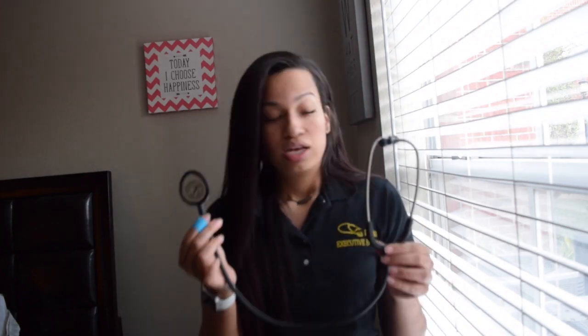Something else I like — this is an entry-level stethoscope, so it's not as advanced, but it's very simple. I feel like if you're just starting nursing school, this is definitely the stethoscope for you. Me personally, and my friends talk about this all the time — we don't like walking around with stethoscopes around our necks. My scrubs have a side pocket, so I wrap it up without damaging it and slide it into my side pocket. I don't have to have it around my neck and it's super convenient.